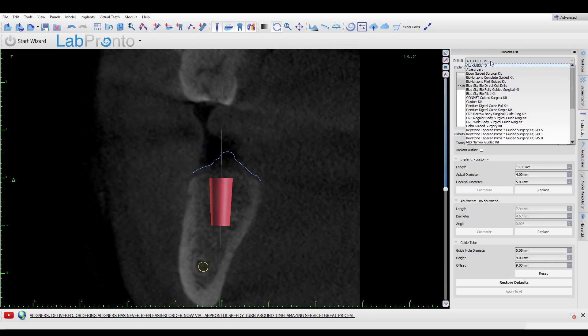Because this is a custom implant, we're now going to have to define what guided surgery kit we want to use. Not all guided kits are created equal. The body doesn't know whose drill made the hole in the bone or whose titanium implant you're placing. There are great implants on the market with really poor kits, and other systems with a great kit but maybe poor implants. My point is: you don't necessarily have to keep those consistent — as long as the hole is the appropriate size, you're all good.